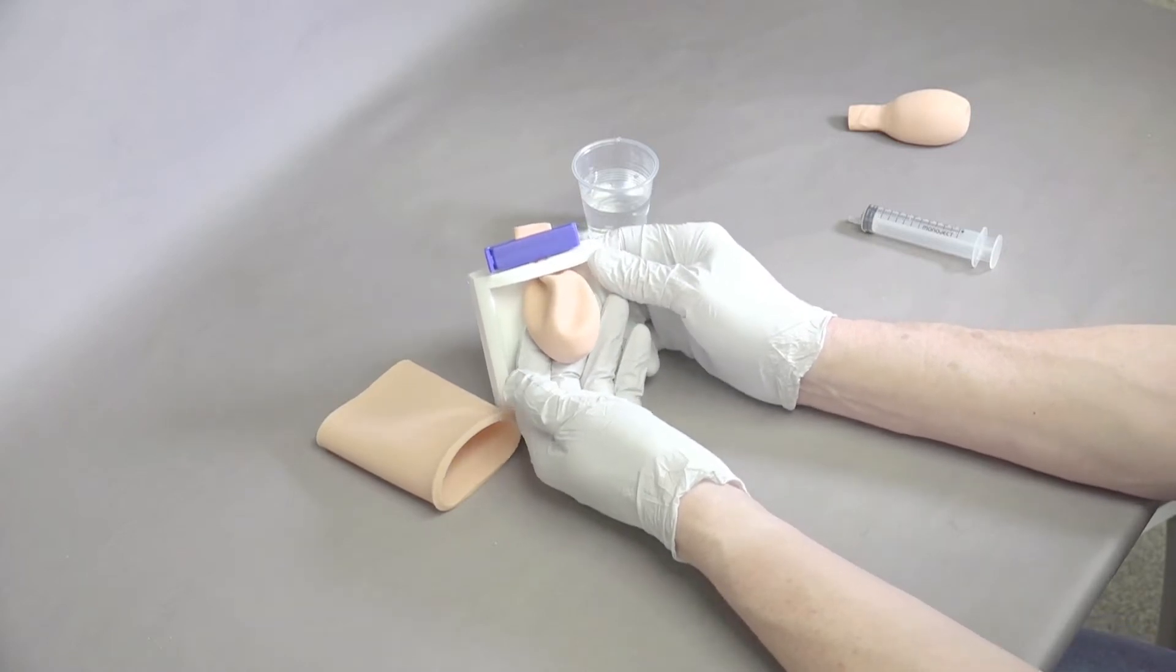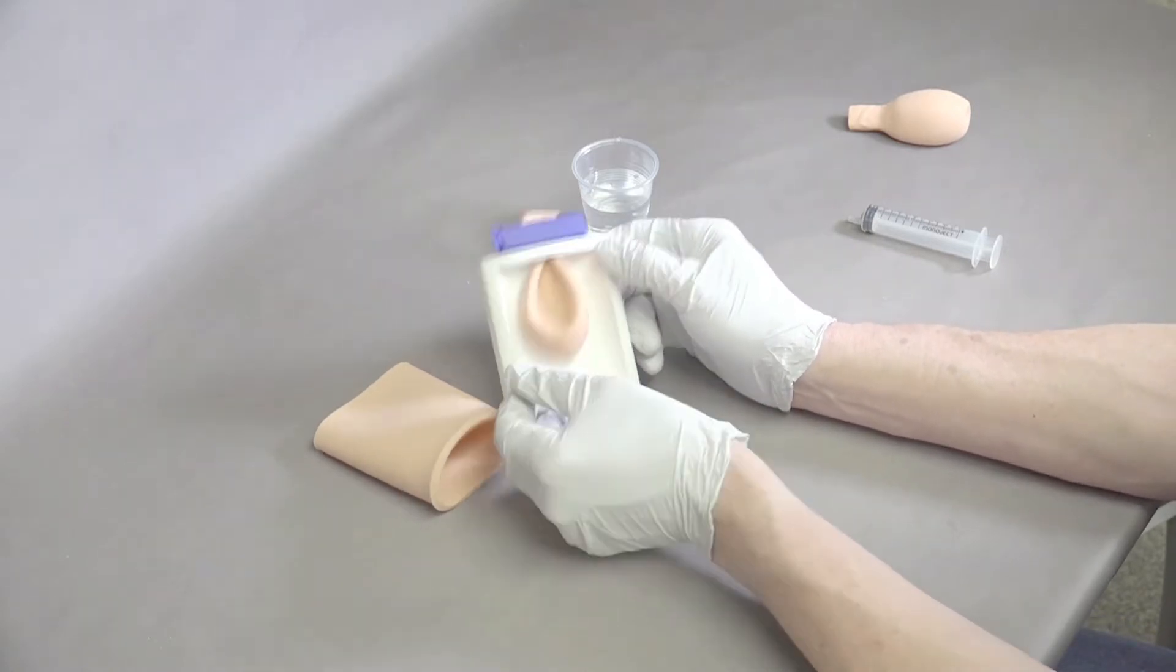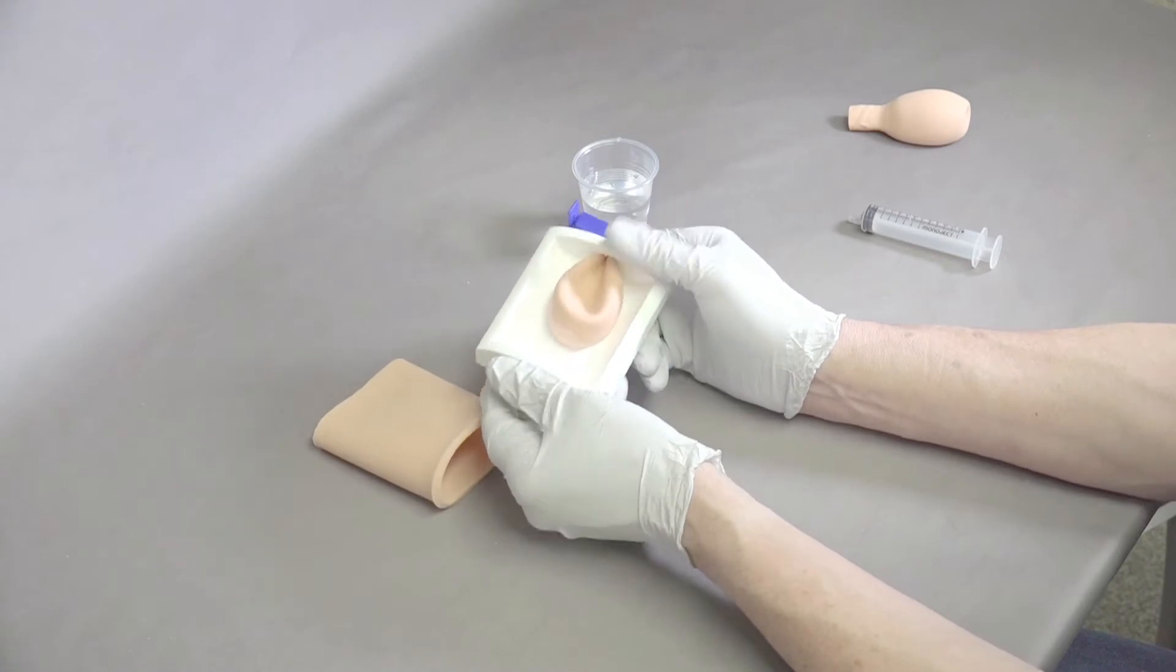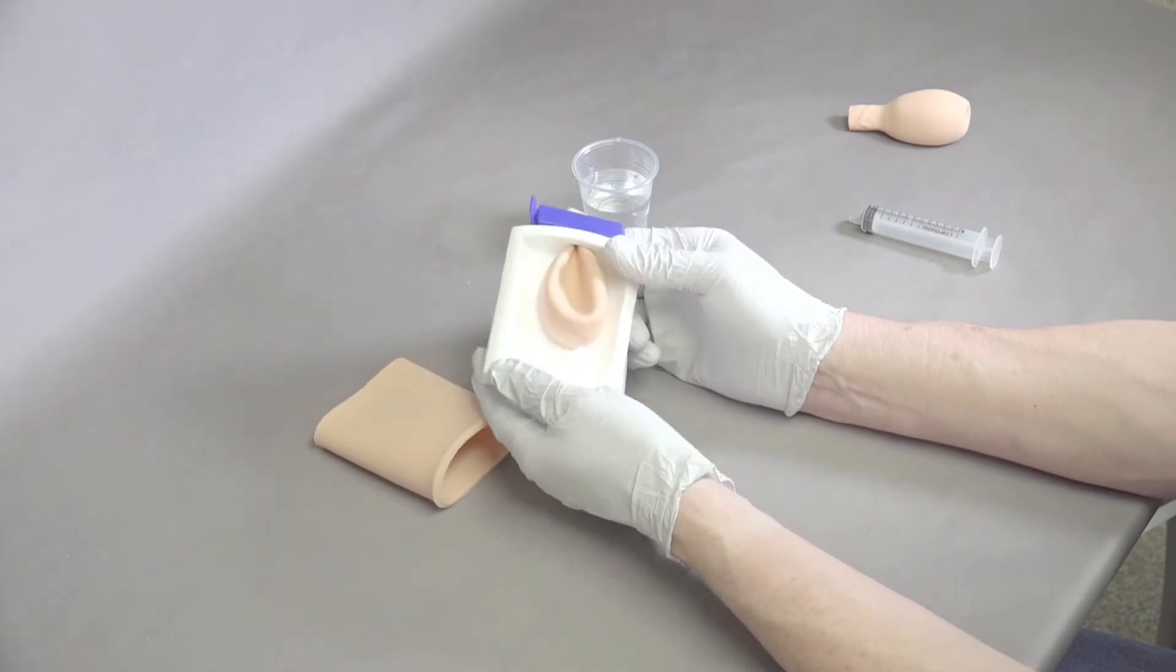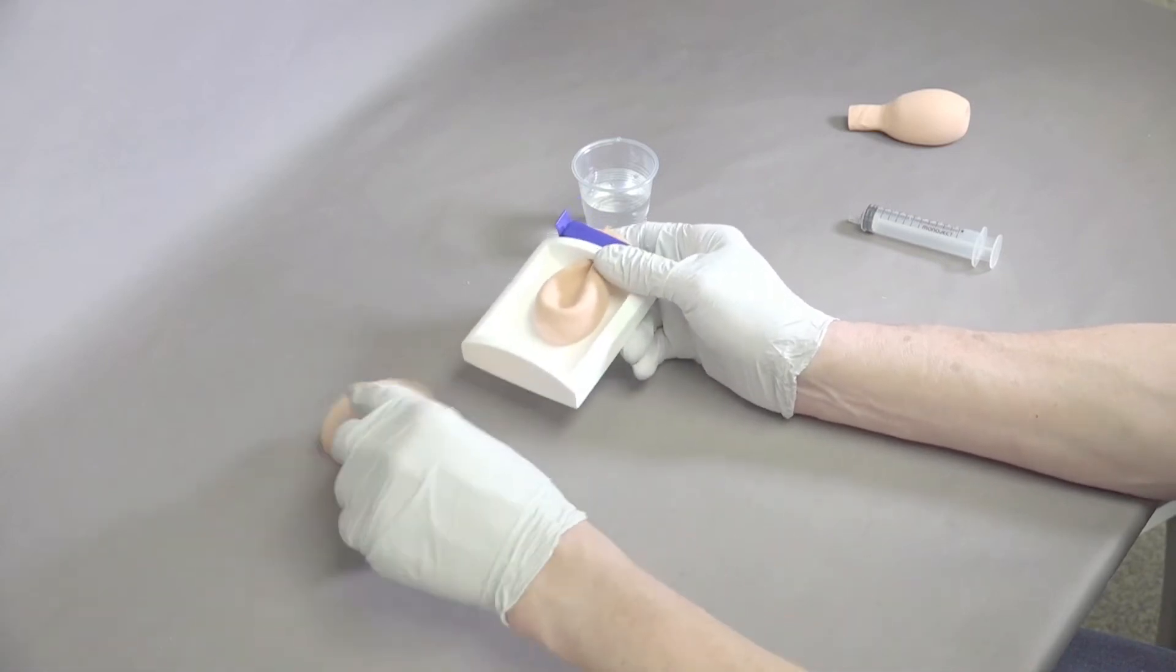If you're practicing to start with, you might put more water in to make it easier to palpate. As they get more skilled, you might put less in. That should be pretty good.